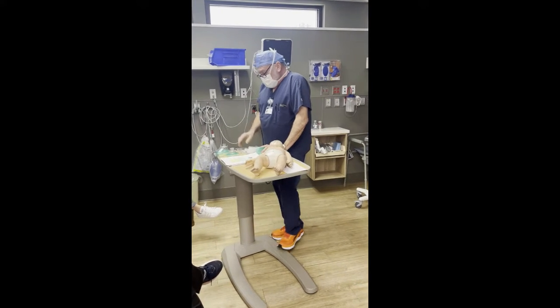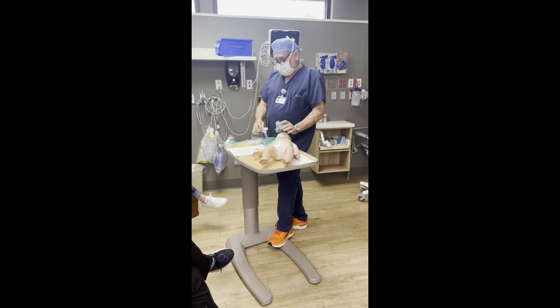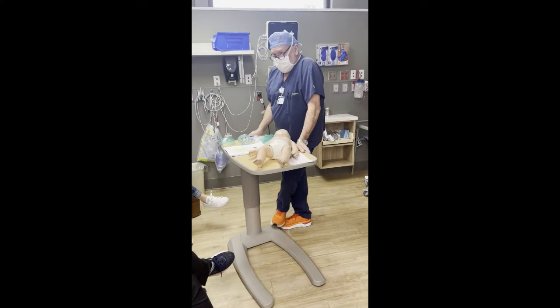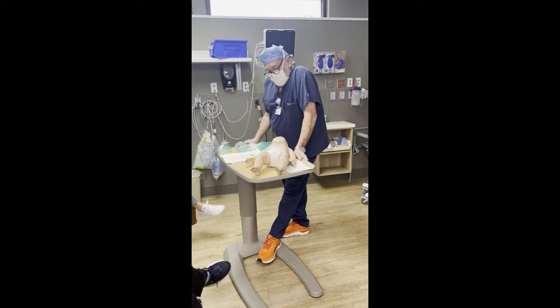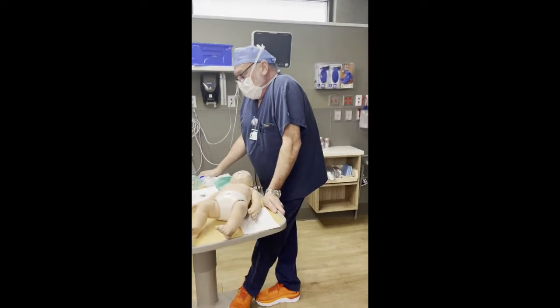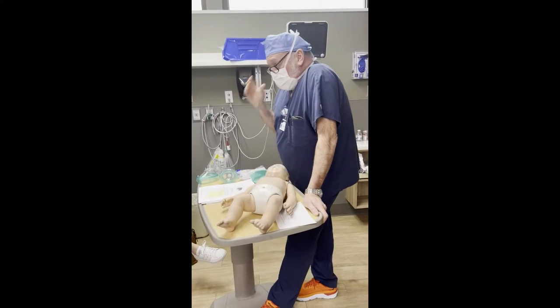There's two uses. You can use it just like a blow-by, if your child just needs blow-by oxygen, or you can use it to break a laryngospasm in a child with an airway emergency. Okay. So before we get into how you do it, let's talk about what causes it. What would you look for if you thought that your child was having an airway problem? What would you see or hear?